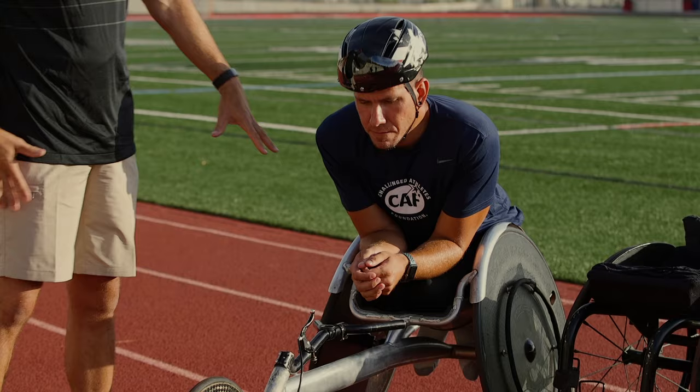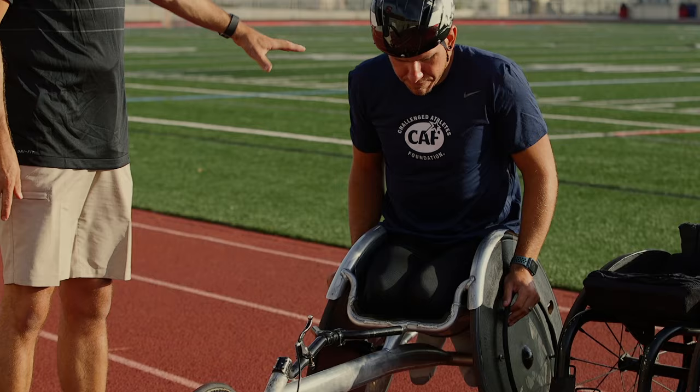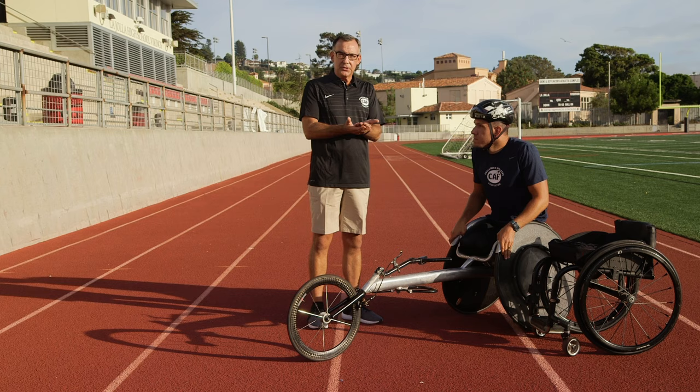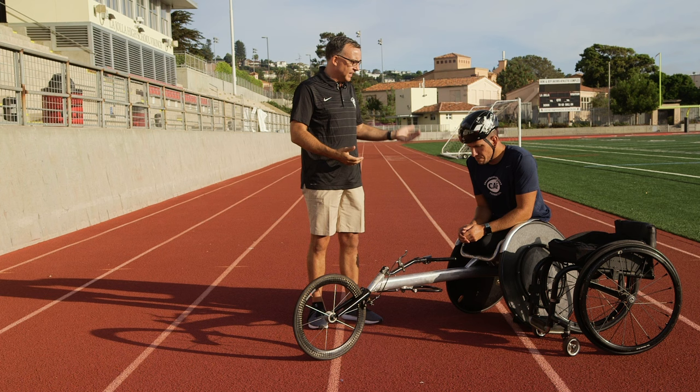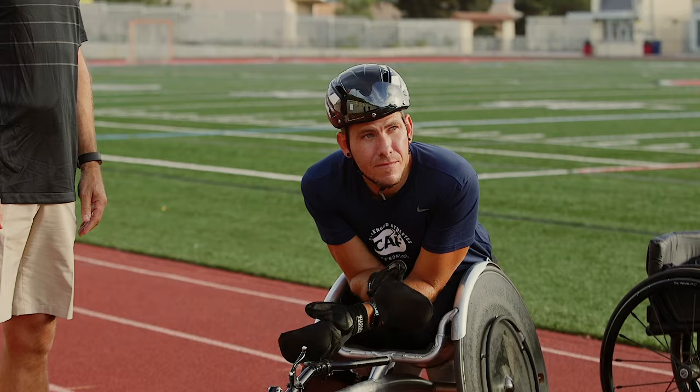You can see it looks like he's sitting on his legs, but in fact he is sitting on this solid aluminum seat in the back. Some chairs come with fabric seats with velcro on them, which makes that seat adjustable up and down, giving a little bit of give so that we can get the right height for the seating position.